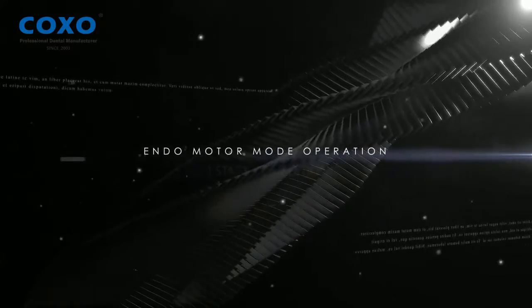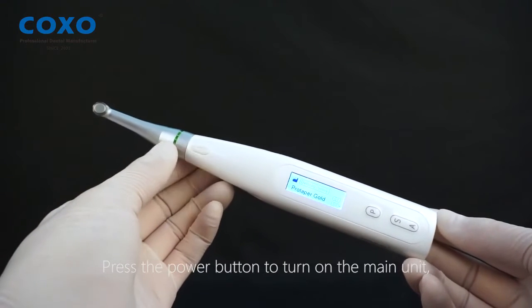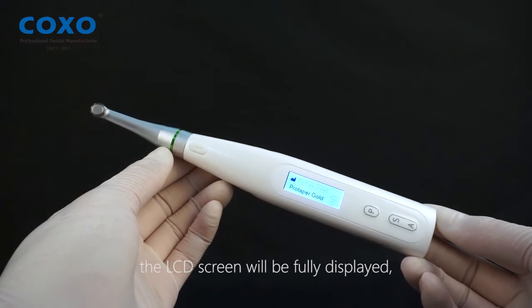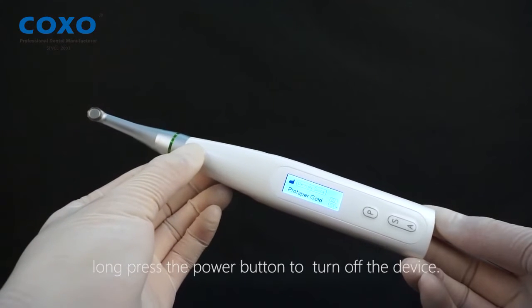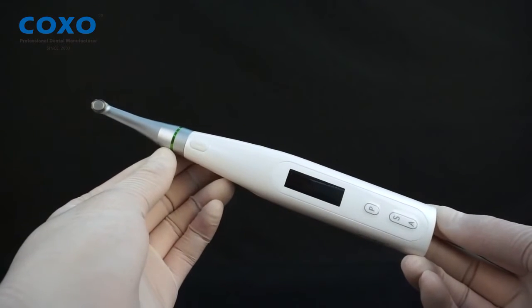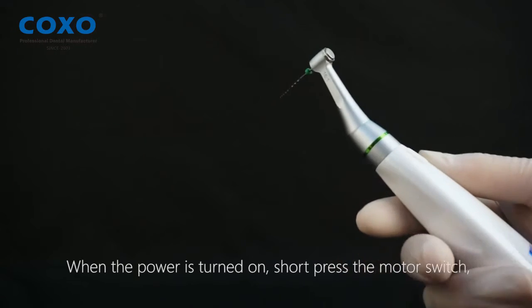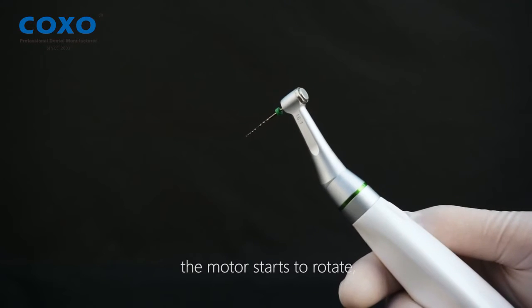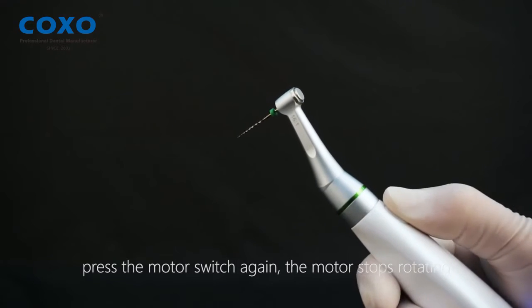Endo motor mode operation — starting up. Press the power button to turn on the main unit; the LCD screen will be fully displayed. When the main unit is on, long press the power button to turn it off. To start the motor, short press the motor switch — the motor starts to rotate. Press the motor switch again and the motor stops rotating.